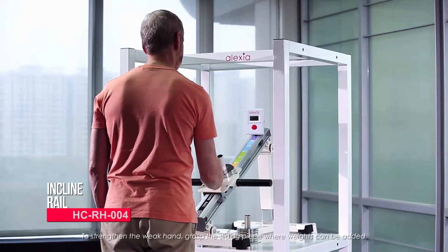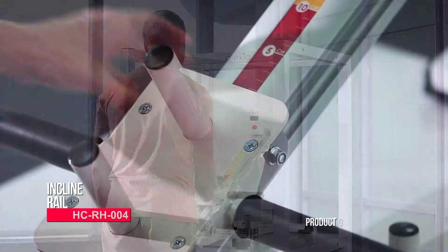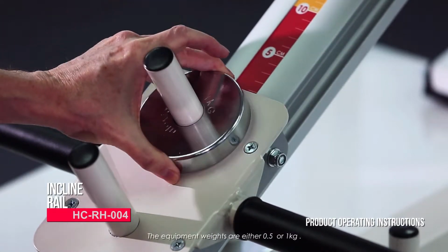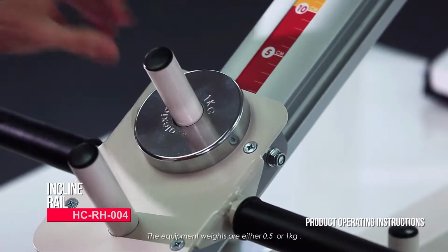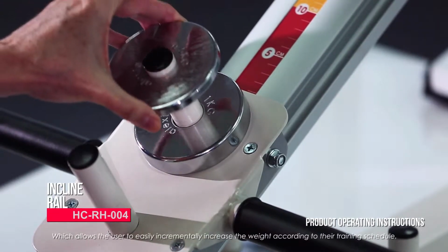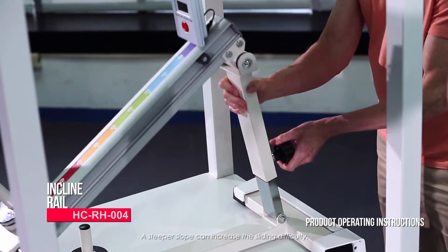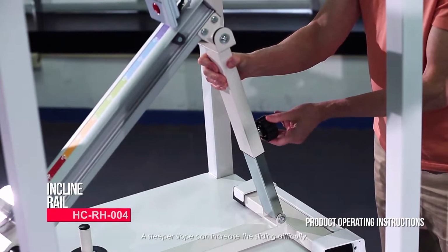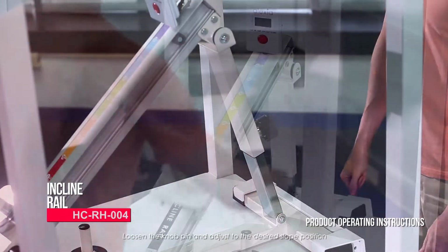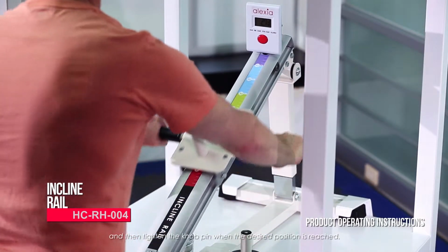To strengthen the weak hand, grasp the sliding piece where weights can be added. Product operating instructions. The equipment weights are either 0.5 or 1 kilogram, which allows the user to easily incrementally increase the weight according to their training schedule. A steeper slope can increase the sliding difficulty. Loosen the knob pin and adjust to the desired slope position, and then tighten the knob pin when the desired position is reached.